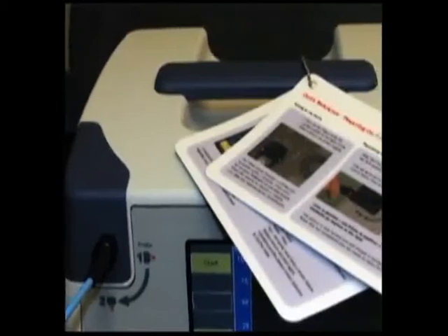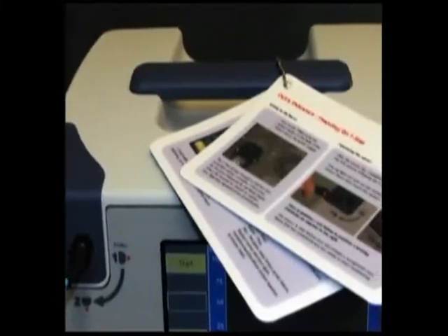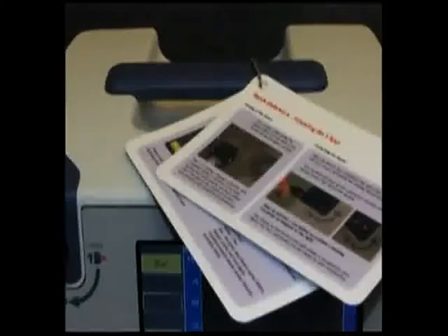Each T-Stat comes with a quick reference guide explaining powering on and off, basic operation, properly connecting, disconnecting, and troubleshooting Q&A. If you still have questions, you may check our information online at www.spectros.com or contact your Spectros representative.